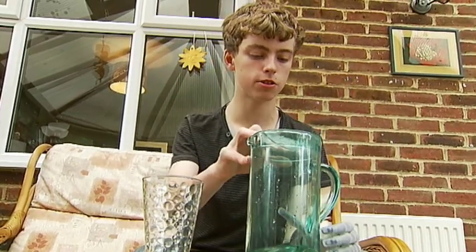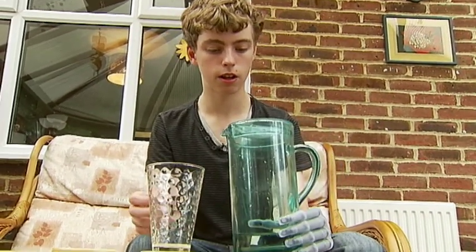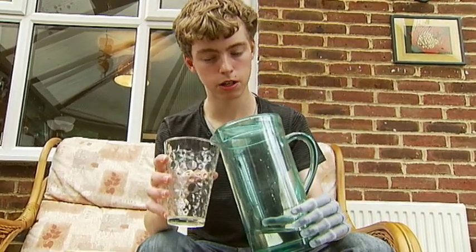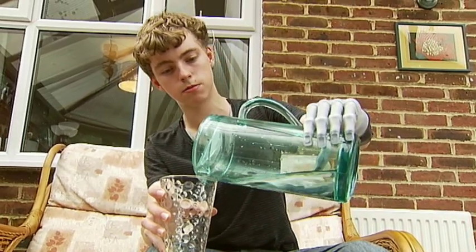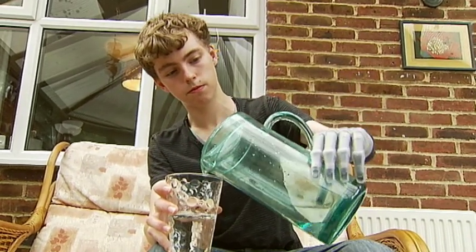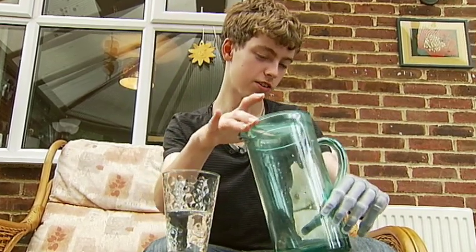So I'm going to try holding it, just grasping it lower down. I don't know if I've got enough grip here. I'll be able to rest it a bit on here. This is working fine. Oh — that's not good. I've just lost a finger.